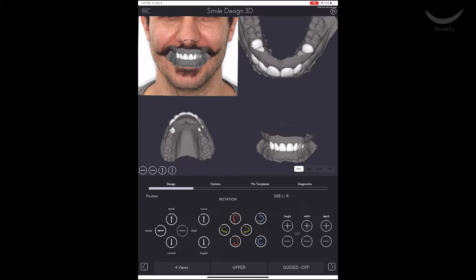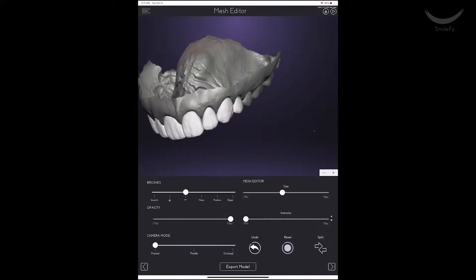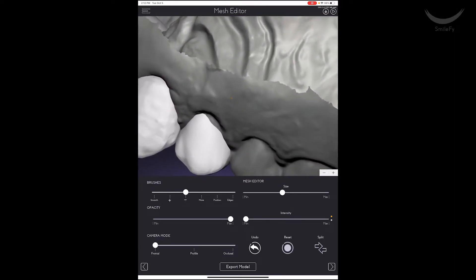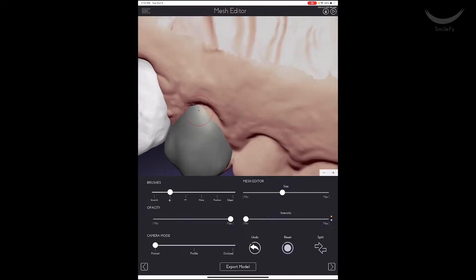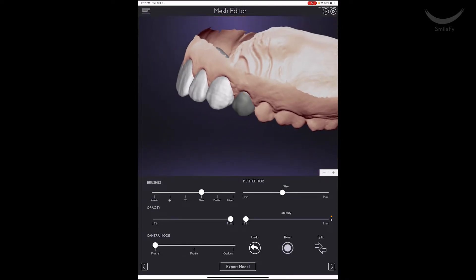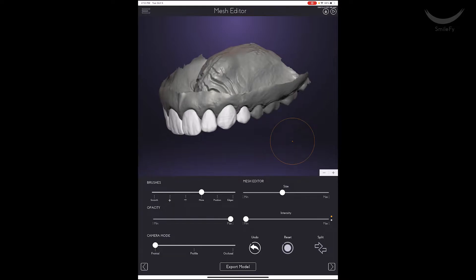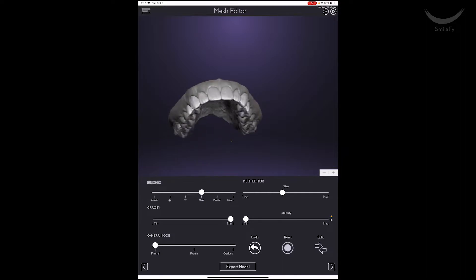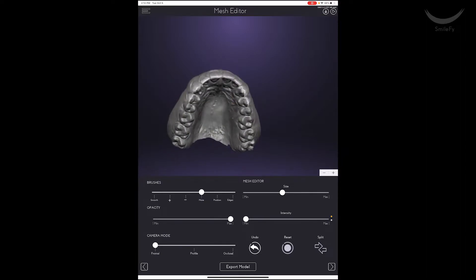Once proper shape, position, and form were selected and adjusted, I went into the final stage of the 3D design called the Mesh Editor. The Mesh Editor is a freehand digital wax-up made to help the designer check on contouring of the teeth design, contact points, and the thickness of the restoration. It also allows you to add or remove excess of the design prior to printing, which reduces chair-side time when performing the restorations as you are already preventing those mistakes digitally first.